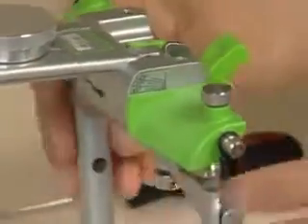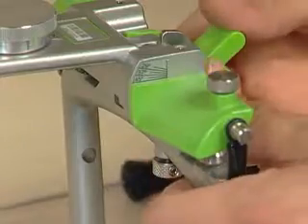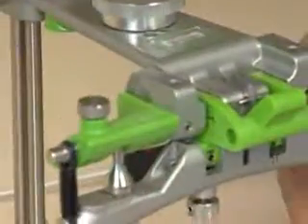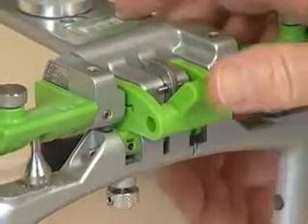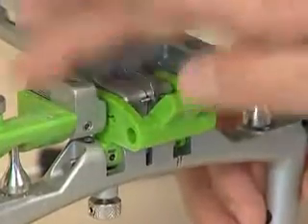We put the analogs at 45 in order to create a situation so that when we mount the lower model, it tends to hold the condyles in center. We want to make sure the centric lock is in place, which centers the top of the articulator over the lower, and then the centric latch is in place that holds the top of the articulator against the condyle balls.